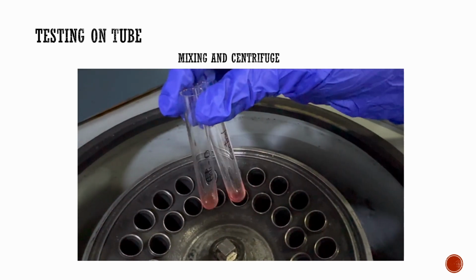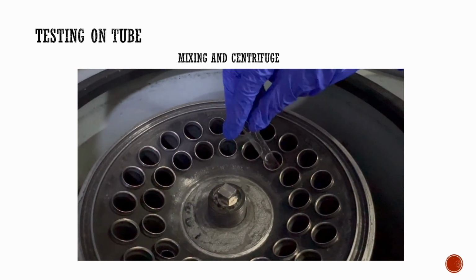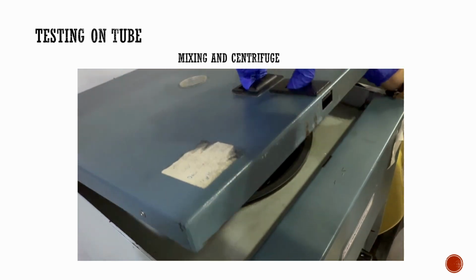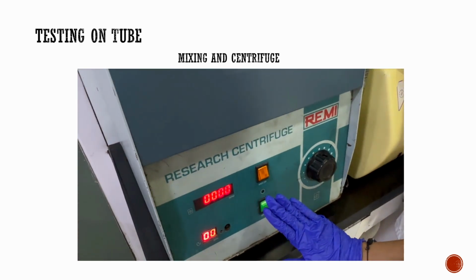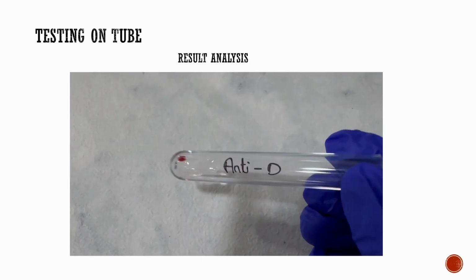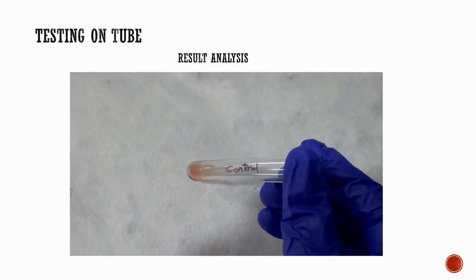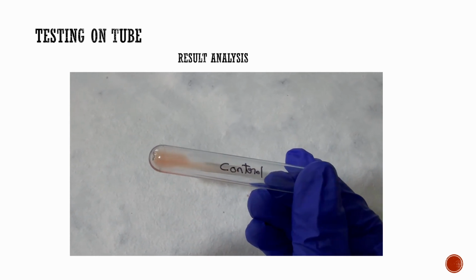Now we mix the added reagents in both tubes and transfer them to the centrifuge. We must ensure that the weight is balanced on opposite sides, close the centrifuge, and centrifuge as per the manufacturer's instructions. Now coming to the result analysis after centrifugation. On gently resuspending the tubes, we can see a clear 4 plus visible agglutination in the anti-D tube, whereas the control tube shows no visible agglutination.